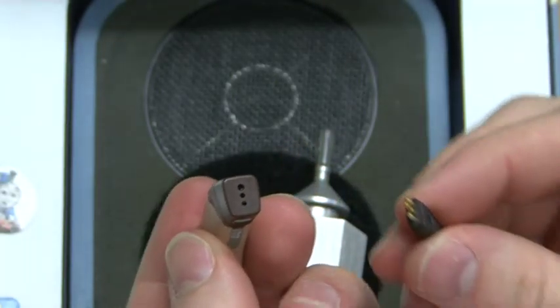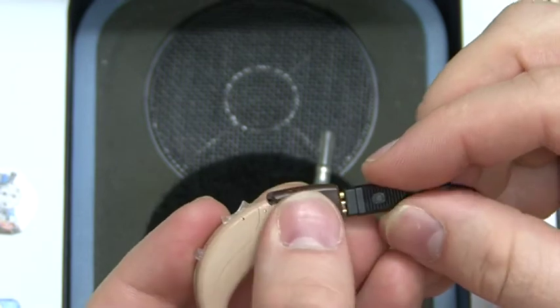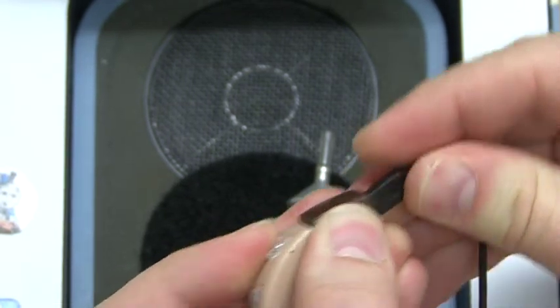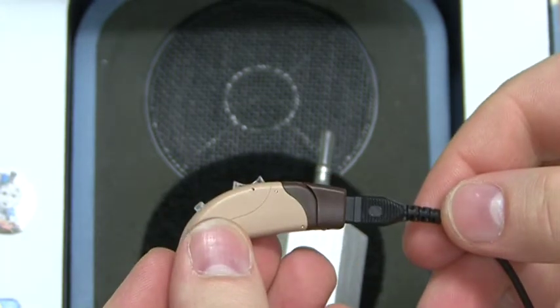Open the test chamber and connect the hearing aid to the direct audio input lead from the ConEvans CRM220 receiver using the connecting shoe as shown. Where applicable, in the extra section, a video on how to fit the battery drawer is included.